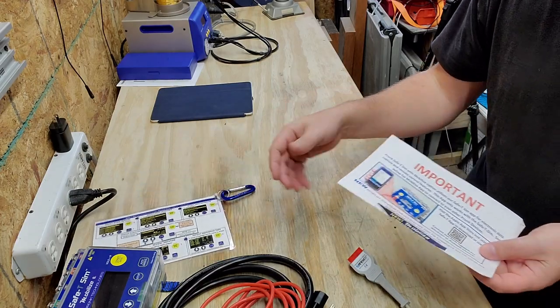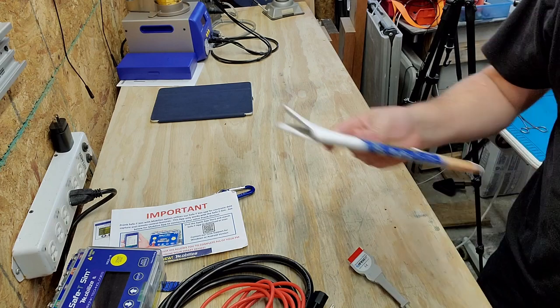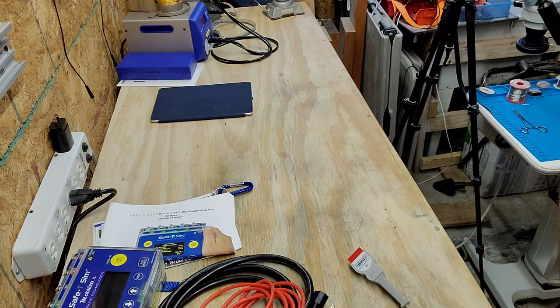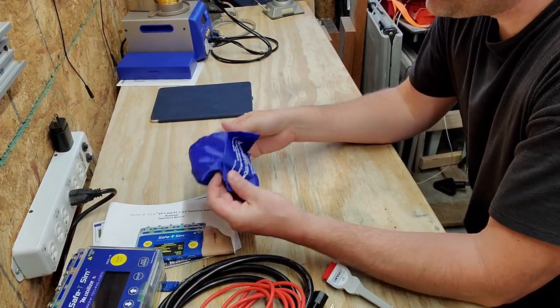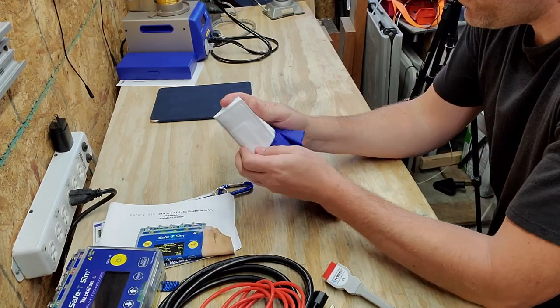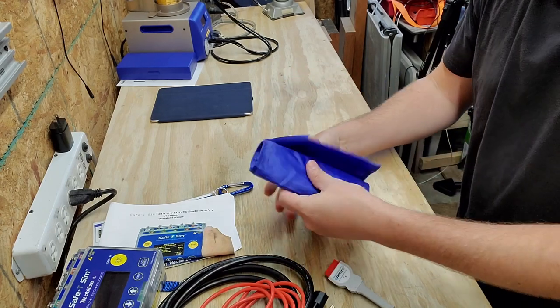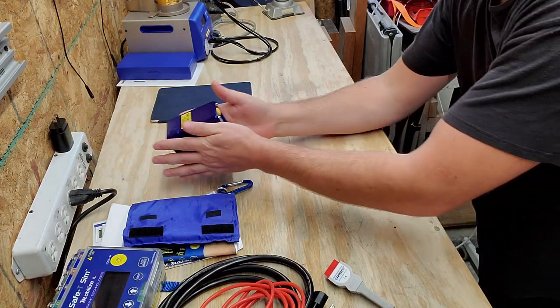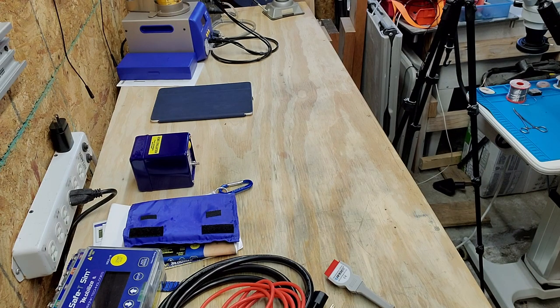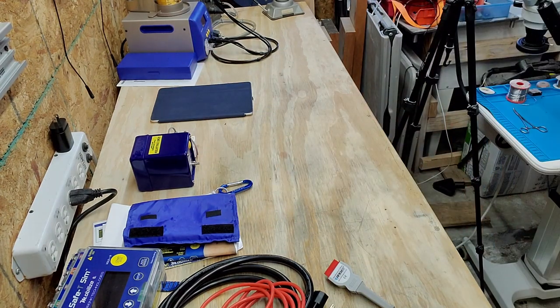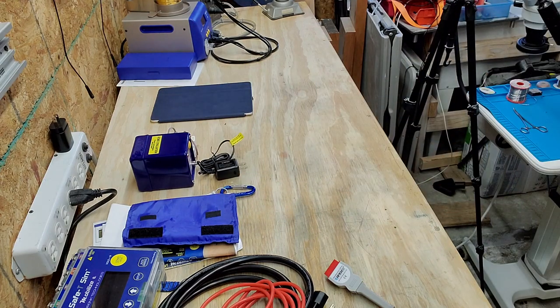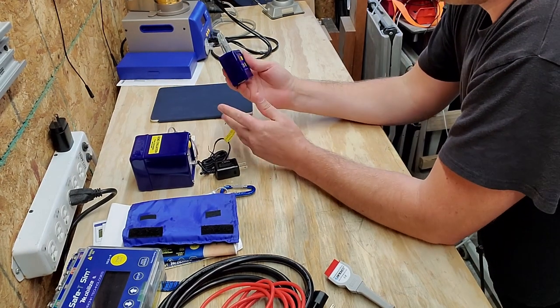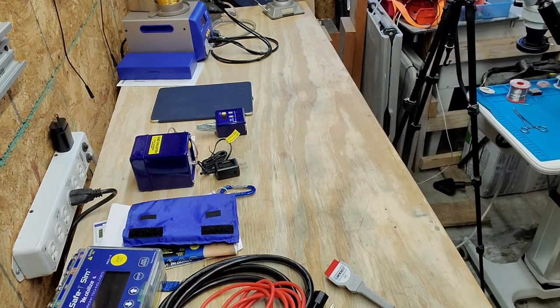I got the quick start kit, safety notices, and manuals. I keep all that stuff down in the base of the backpack. I have my non-invasive blood pressure sleeve, and I keep a cuff naturally inside the sleeve. I have the SimCube with a battery source and an AC adapter for him.